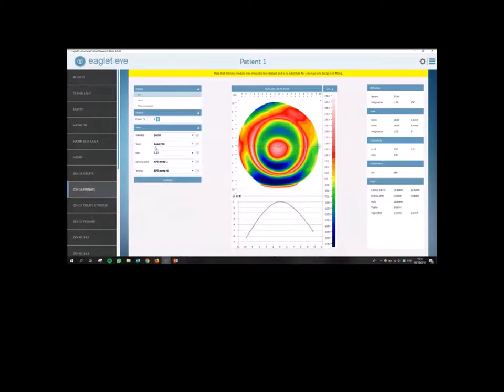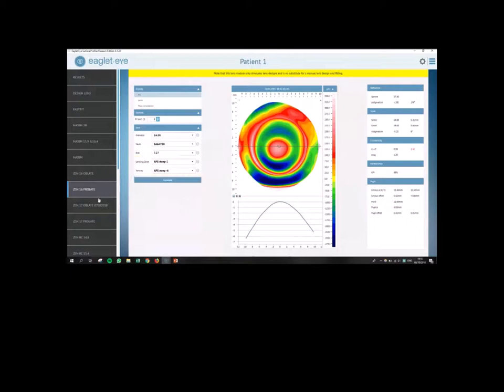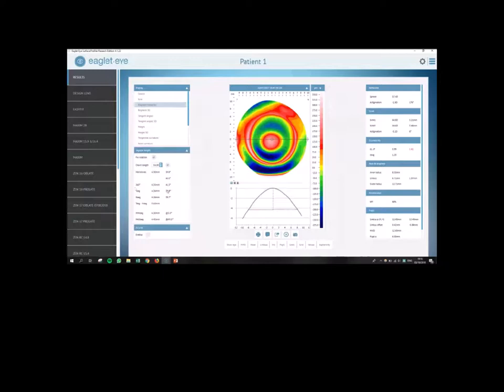So right now, it's telling to go for a sagittal height of 4700. And also, it's predicting a toric landing zone, about four steps. So what we can do now is we can go back to that result, and we can check that. So in this case, I'm going to type in a cord length of 16 millimeter, and I'm going to see what information is coming out of it. So if we go to the toricity right away, you can see there's a difference of about 120 microns.